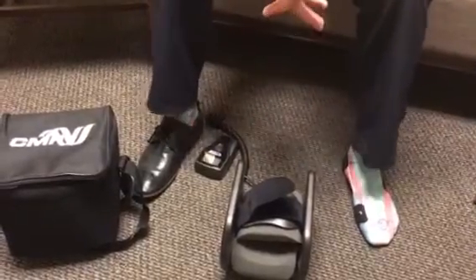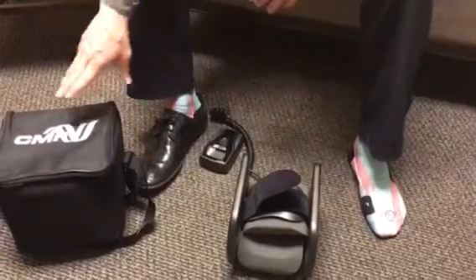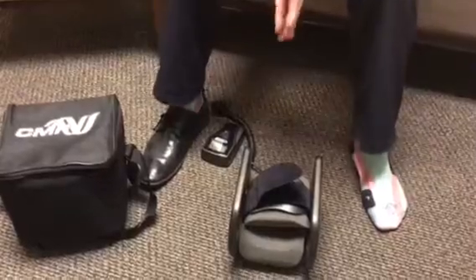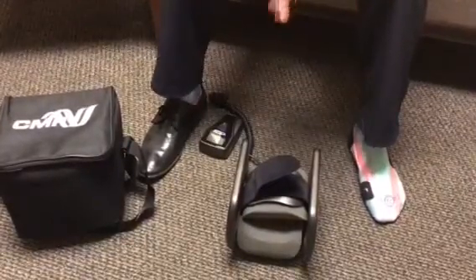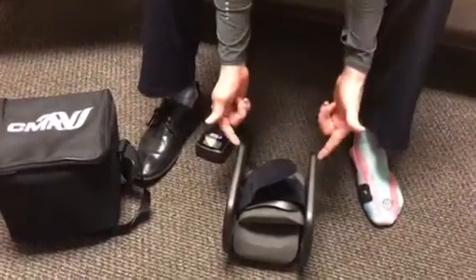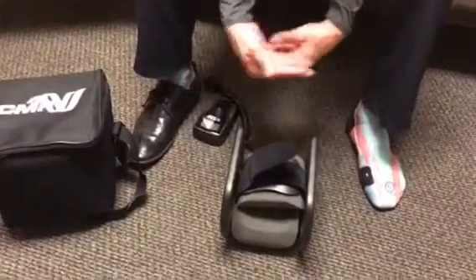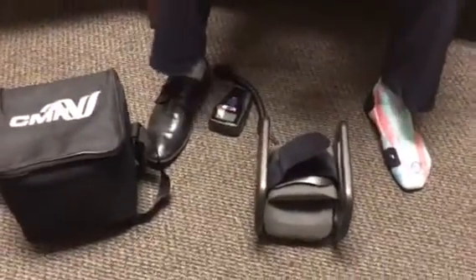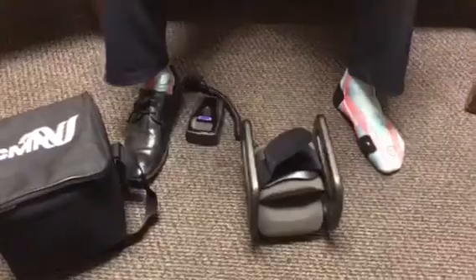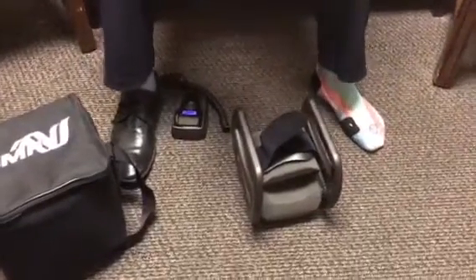You've received your Donjoy Bone Growth Stimulator with Combined Magnetic Frequency. This is the OL-1000 Bone Growth Stimulator Dual Coil. There are two coils that will be shooting the electromagnetic wave across the fracture or fusion site.